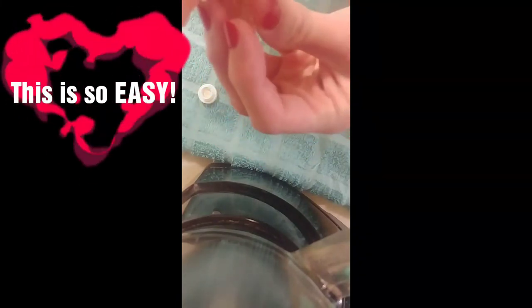The lower denture is actually easier to do than the upper. Get your key tight, take your cap, and you're going to want to start from this end — then hold it down and just go along the horseshoe. Then place it in your mouth.